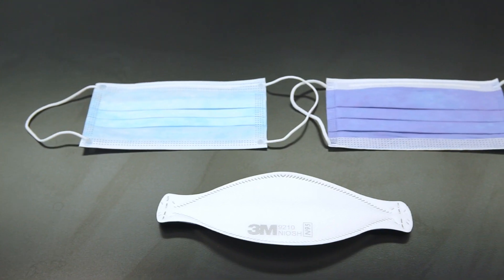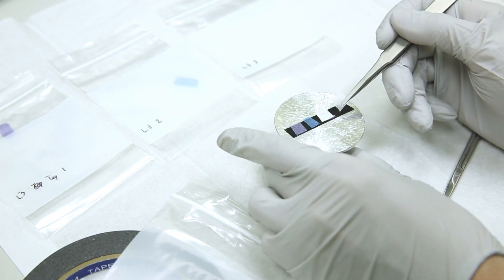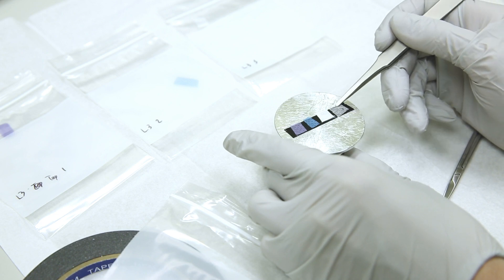Welcome to the HiMagTAM channel. In this video, I'm going to show you the micro and nanoscale structural differences between different grades of masks and respirators approved for medical use. By exploring the structural differences, we can understand why certain masks are more preferable than others.